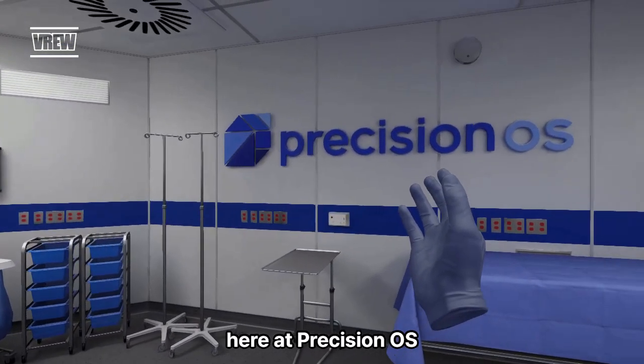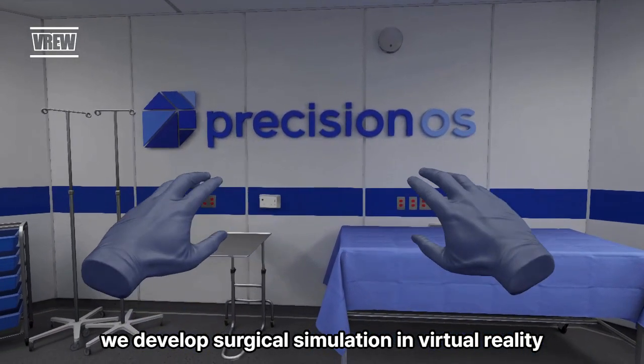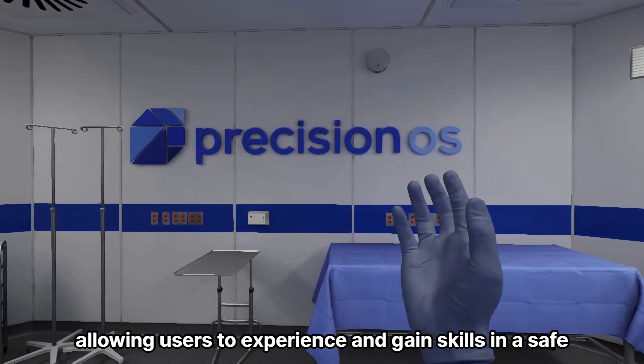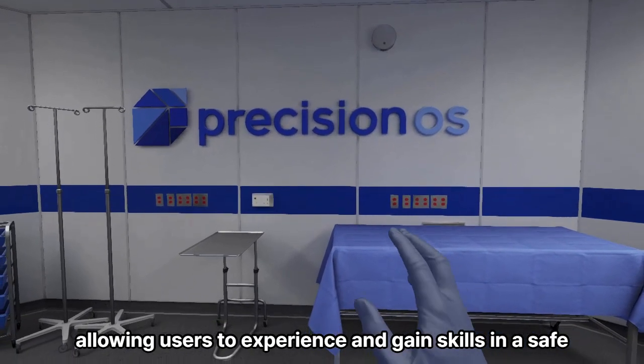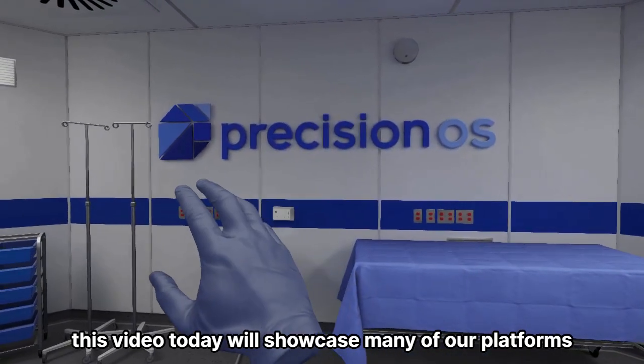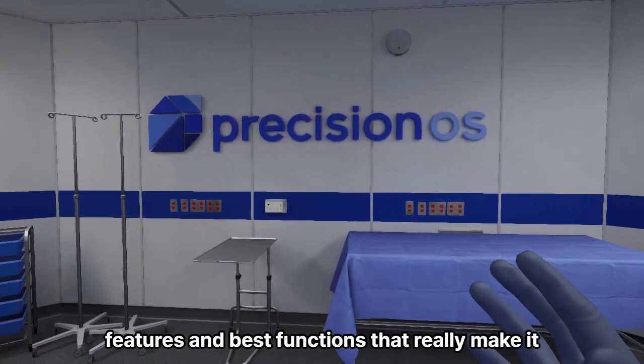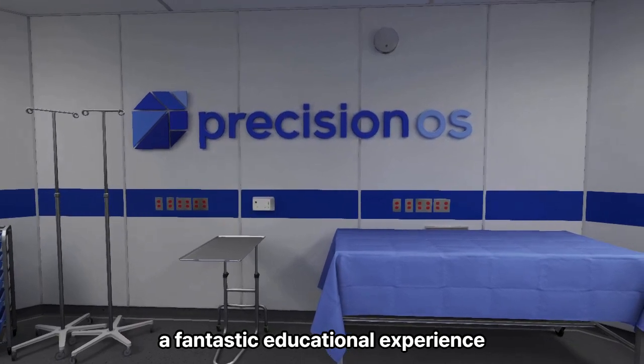Here at Precision OS, we develop surgical simulation in virtual reality, allowing users to experience and gain skills in a safe and dedicated space. This video today will showcase many of our platform's features and best functions that really make it a fantastic educational experience.